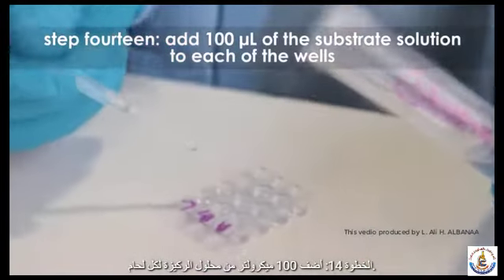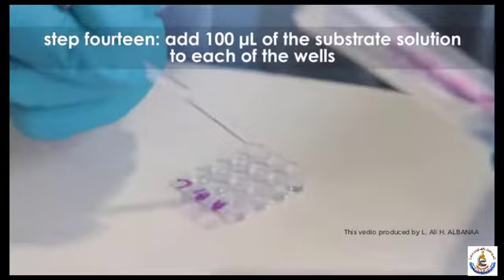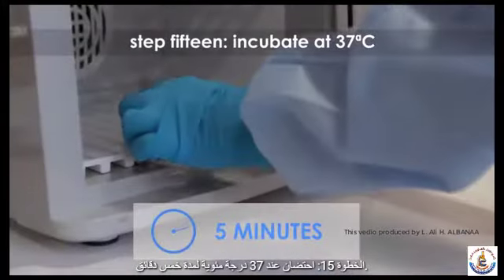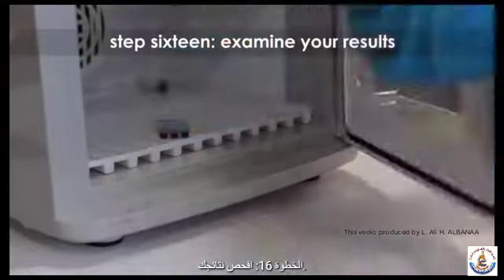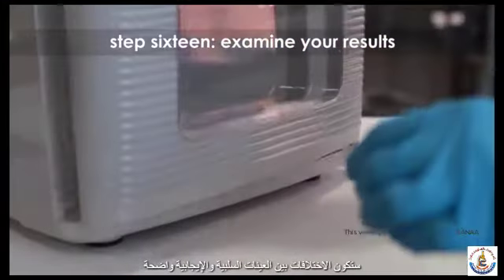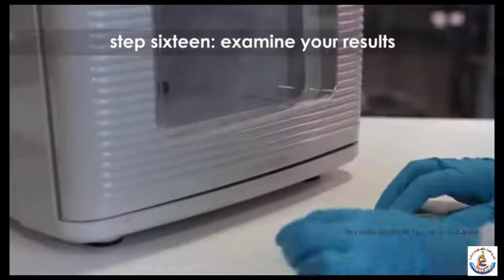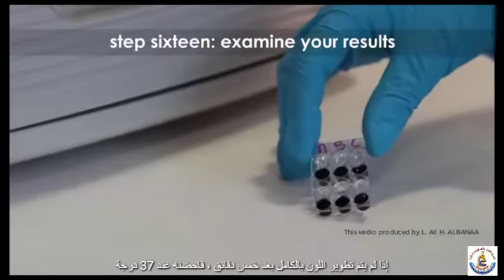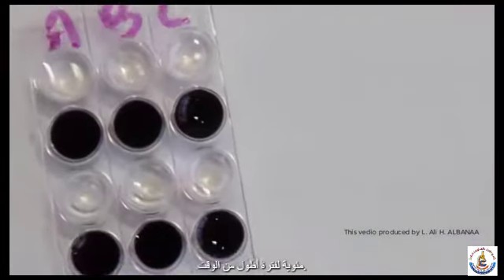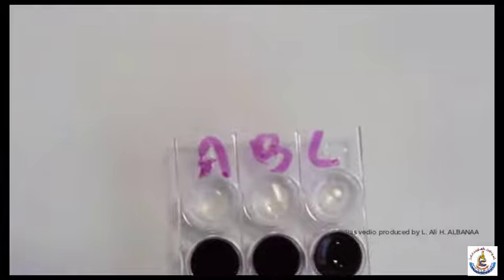Step 14. Add 100 microliters of the substrate solution to each well. Step 15. Incubate at 37 degrees Celsius for 5 minutes. Step 16. Examine your results. Differences between negative and positive samples will be obvious, with most positive samples turning brown in color. If color is not fully developed after 5 minutes, incubate at 37 degrees Celsius for a longer period of time.